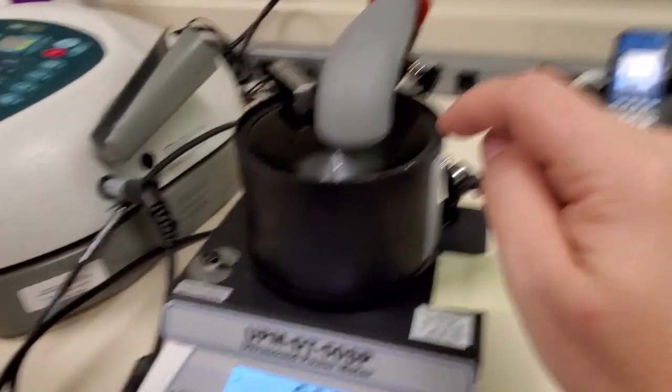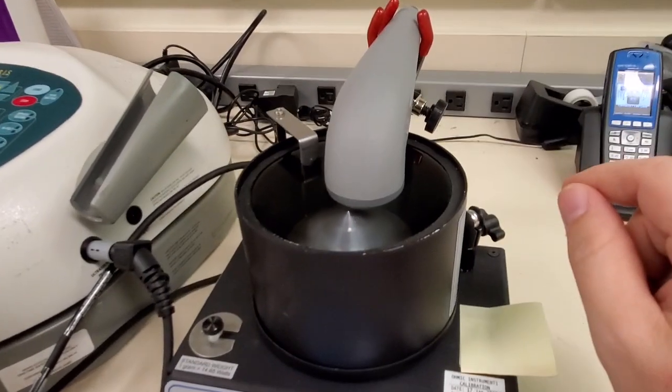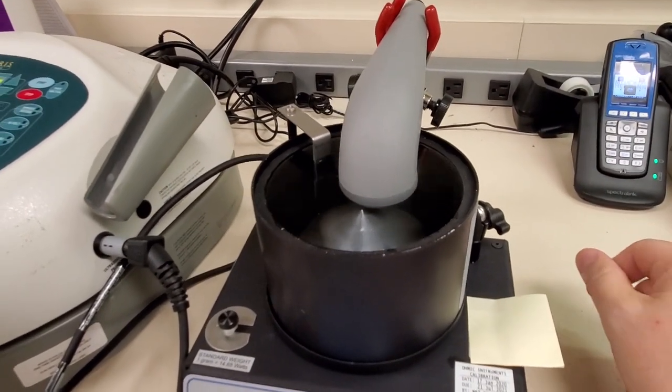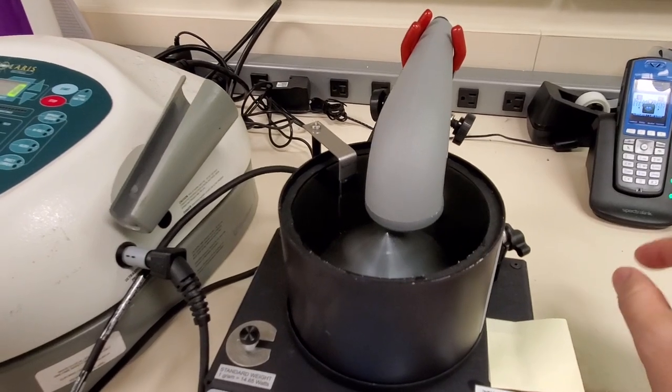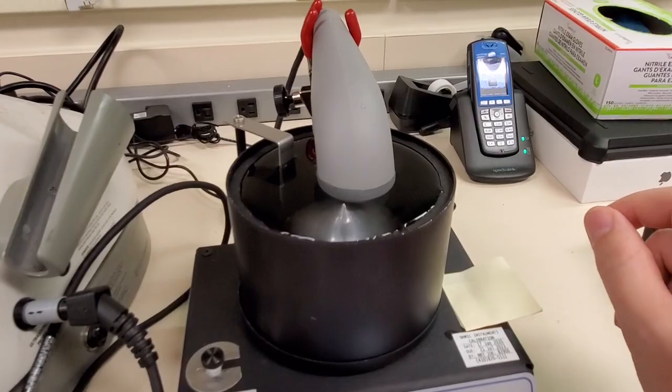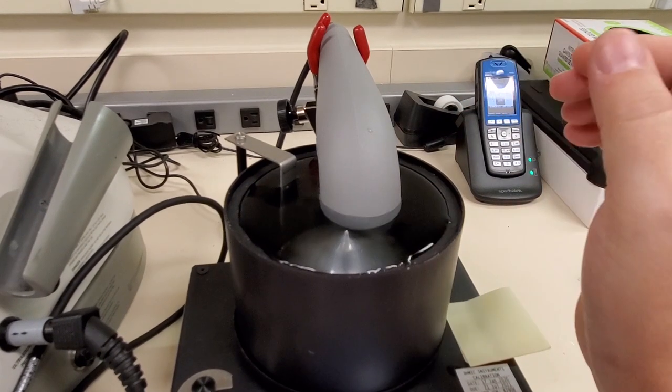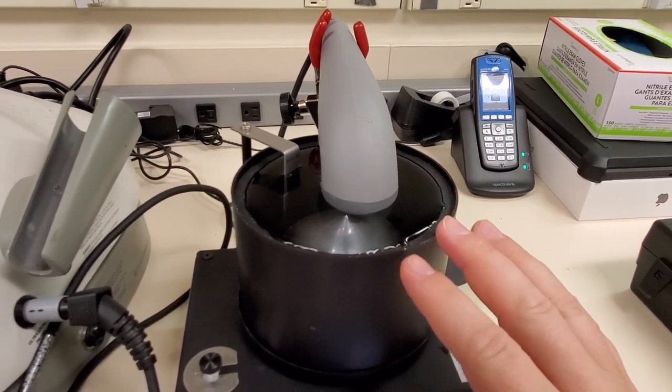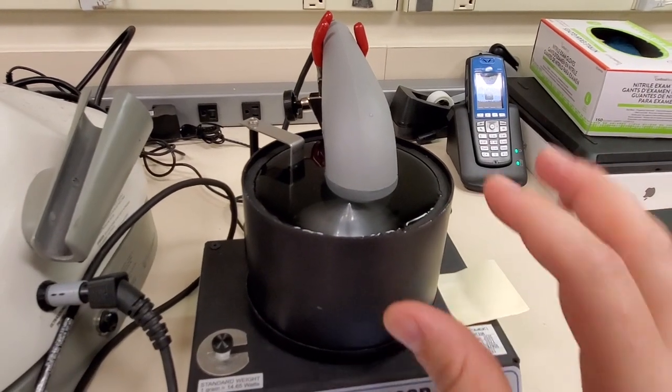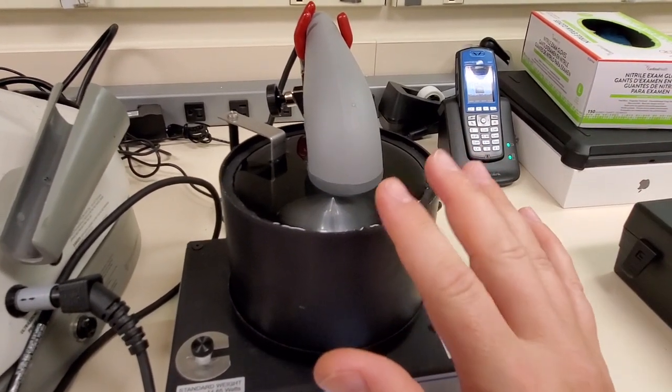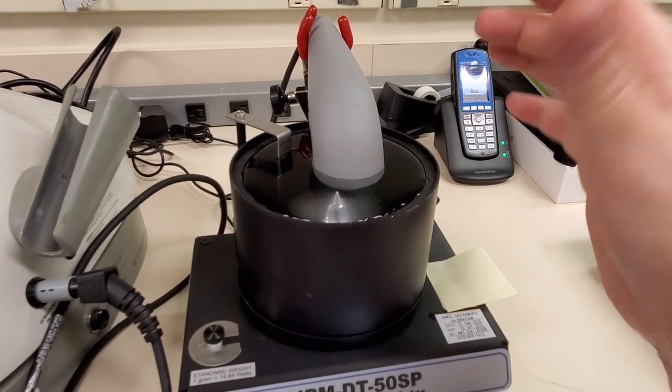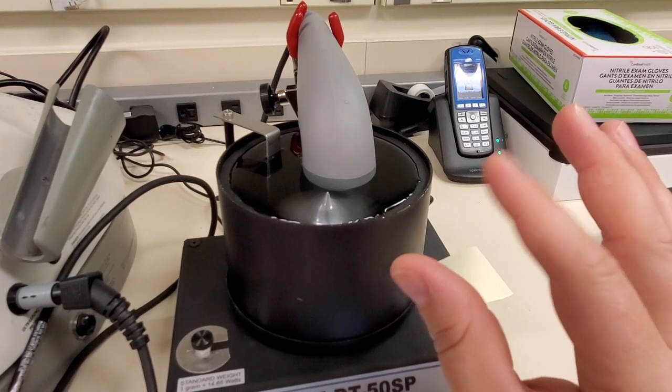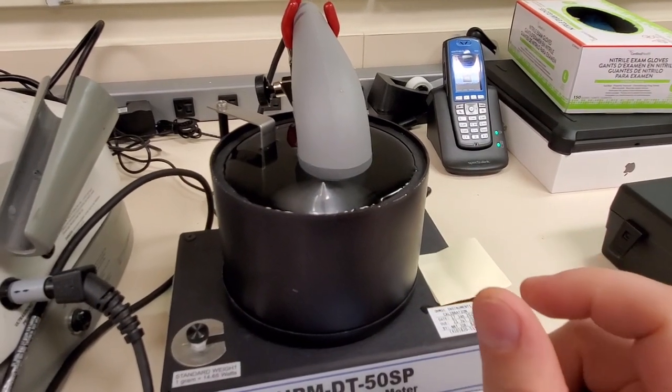Now earlier you heard me say that it's got degassed water inside it. Why do you suppose I need degassed water? Since we're using such low ultrasound output wattage, every single little thing can affect your output. As you guys know, gases compress, water will not, which is why it's sitting in a tank of water. If there's lots of gas bubbles in there, they will act like shock absorbers and they'll absorb some of the energy that's emitted from the head, and I will get inaccurate readings.